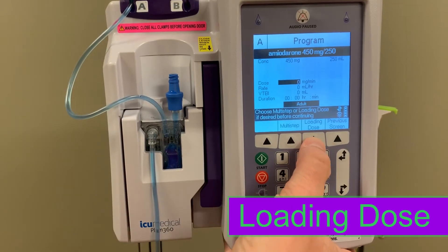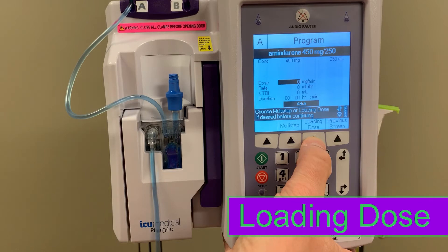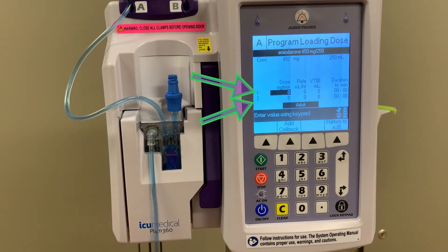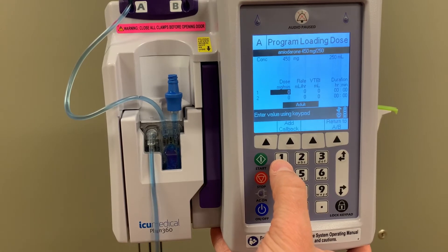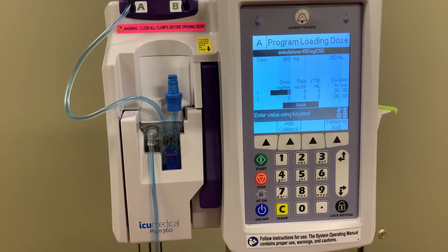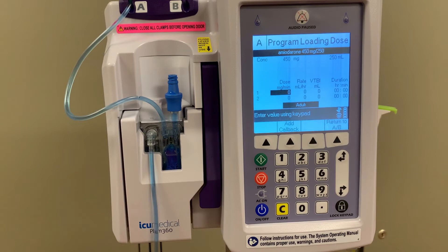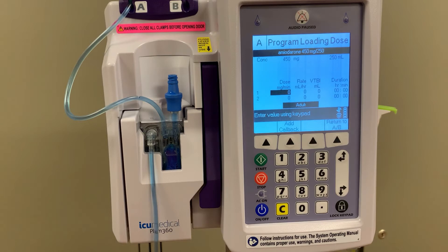When you are initially programming an infusion, you will have the option to program with a loading dose. Loading dose allows you to program two different rates that will infuse for a designated volume or time. Once the first line of programming is completed, it will change to the programmed rate entered in the second line. This can be used when a medication has two separate rates, or if you need to program an initial loading or bolus dose. This is very similar to bolus programming, except that it is entered before you begin infusing a medication, whereas bolus programming is done during an active infusion.